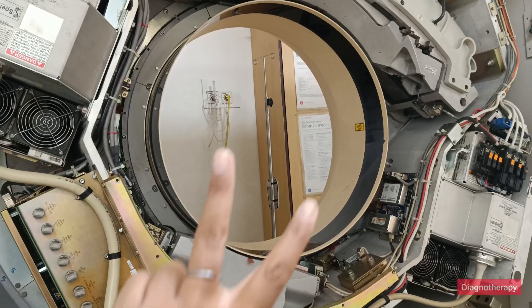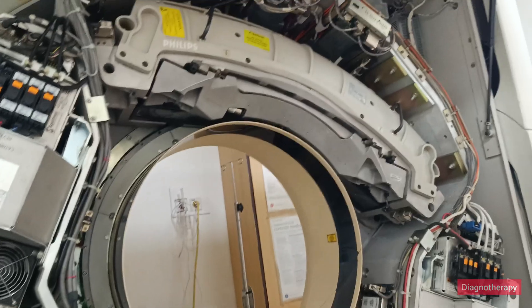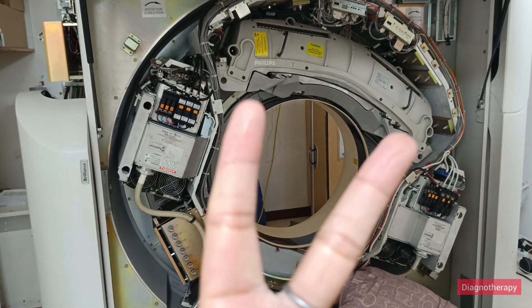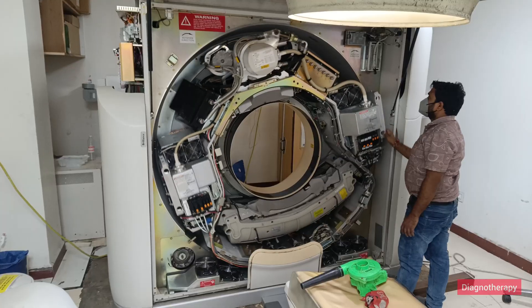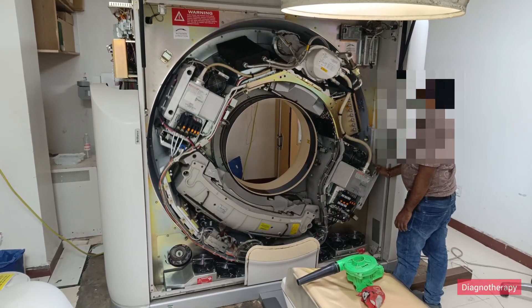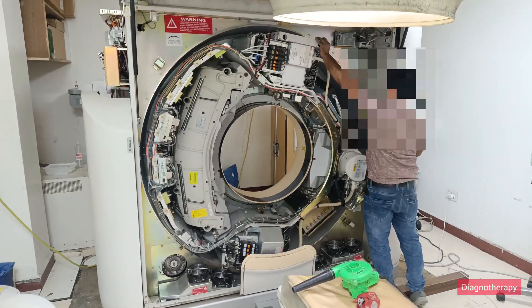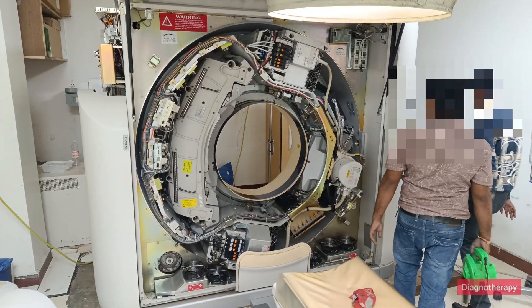Above we have the detector array. This x-ray tube generates a conical beam which falls on the detector. As it revolves, from different directions the x-ray takes pictures of bony structures, muscular tissues, and different parts from multiple angles.